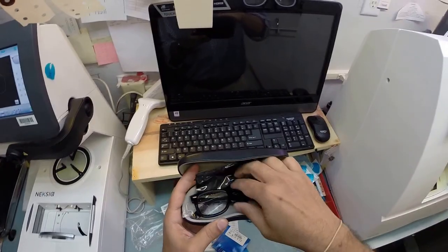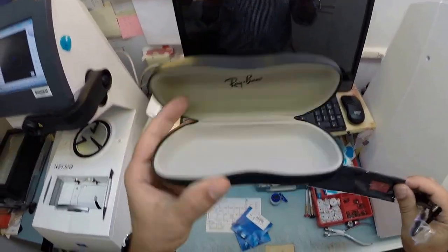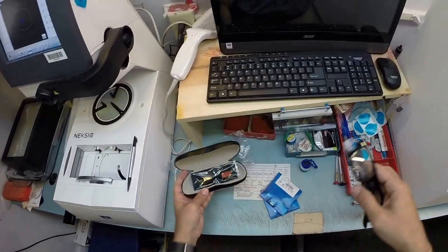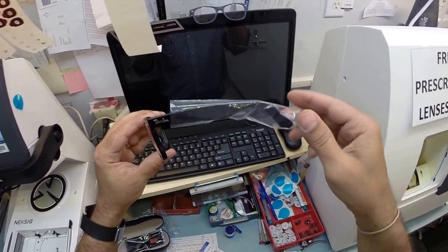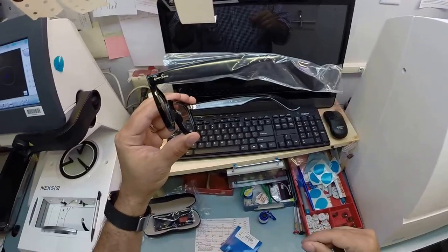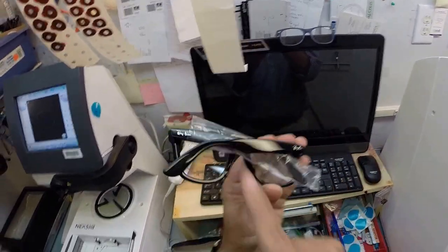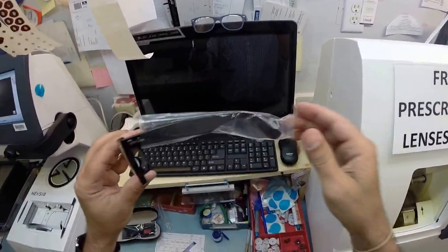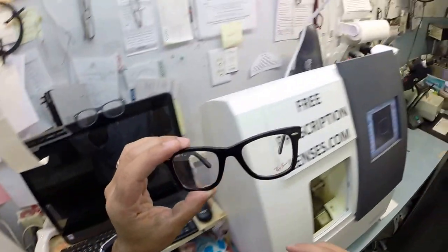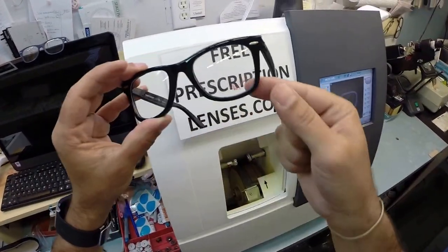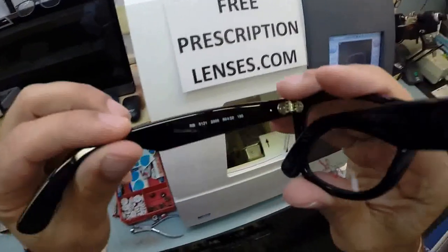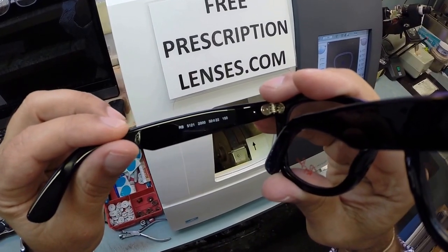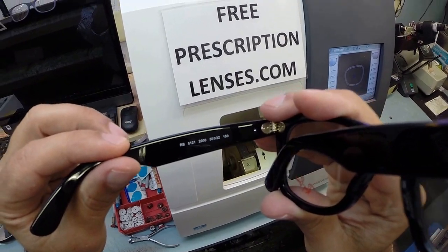So I'm going to take your frame out of the original packaging as they send it to me. Of course, your Ray-Ban case, your Ray-Ban cleaning cloth, and the star of the show tonight, the Ray-Ban 5121. Of course it comes with a little plastic sleeve on the left temple to protect the temples from rubbing together during shipping, and I'm going to include that to you as well as both your demo lenses, one of which that says Ray-Ban. And of course again, this is the Ray-Ban 5121, color 2000 in the 50 eye size.